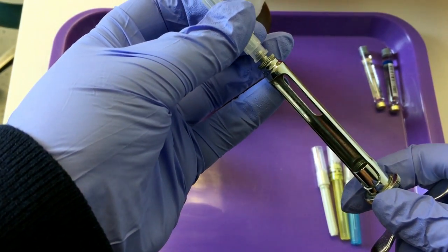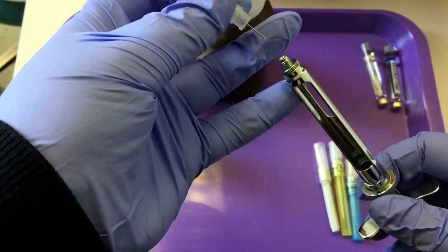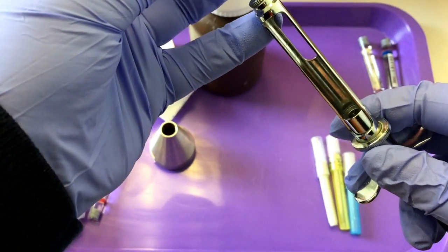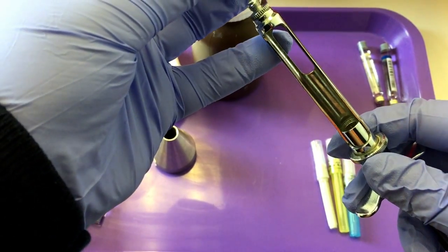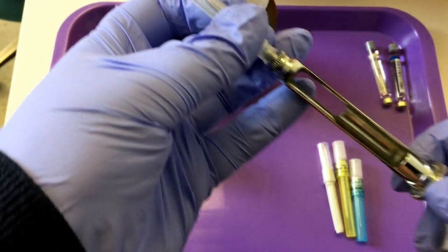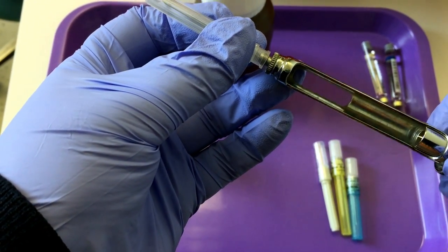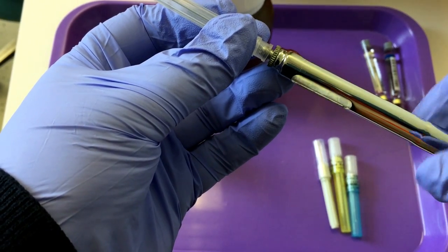Place the stylus through the hole on your adapter. I always like to support it with a pinky. And here's what's really important: always turn the metal syringe, never turn the needle.